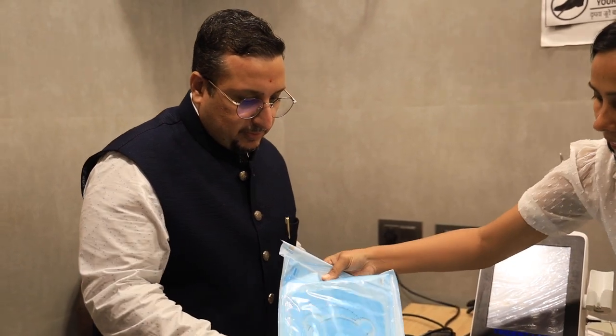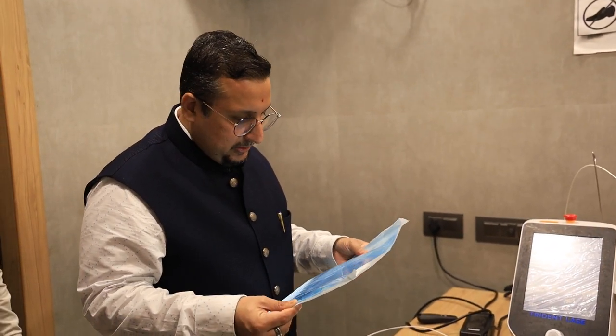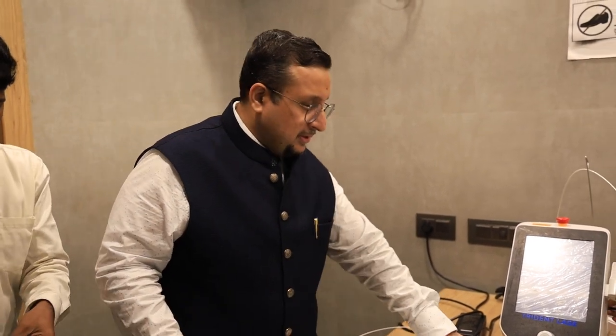This is your radial fiber and this is the conical fiber. This is the cutter.